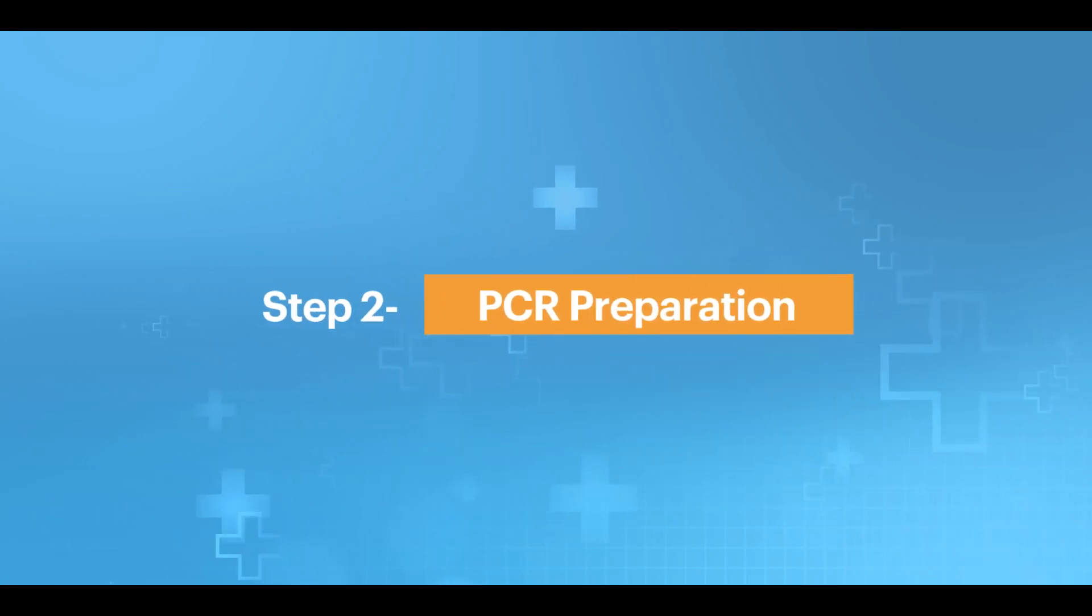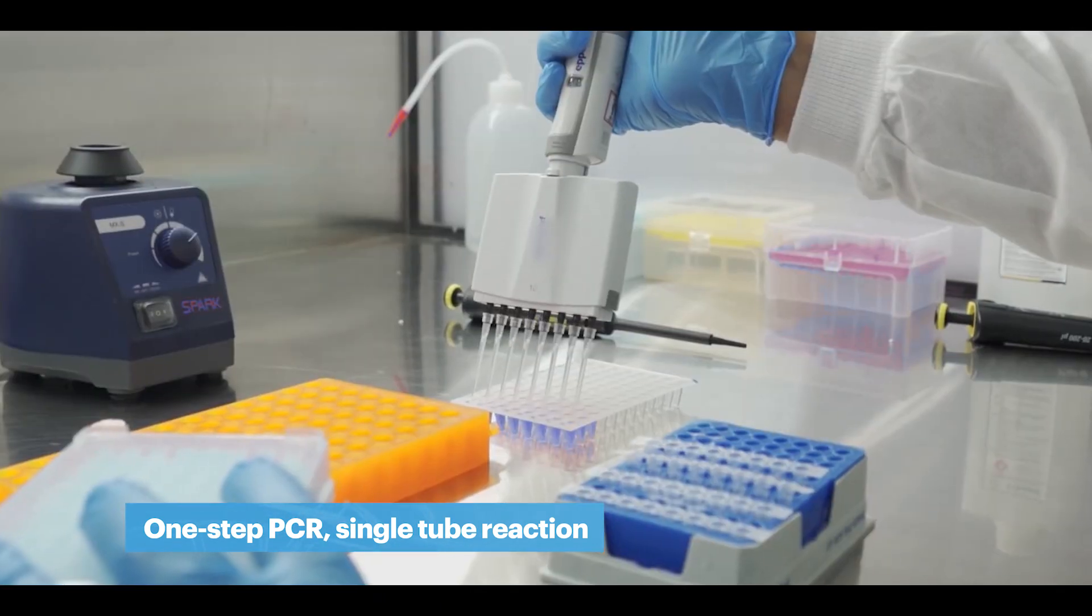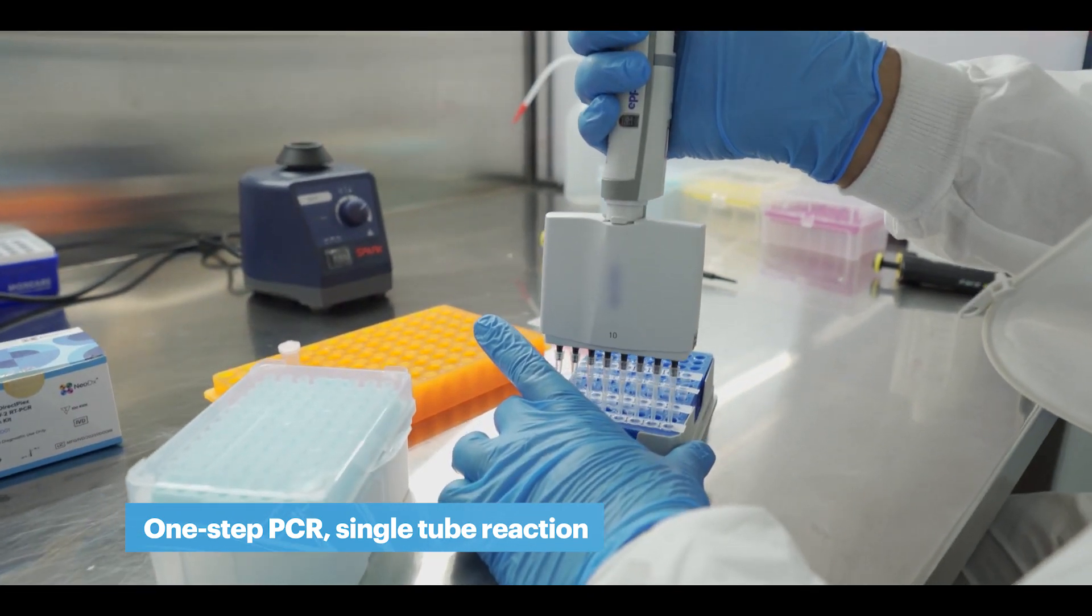Step 2: PCR Preparation. PCR reaction mix is prepared and dispensed into strips. Inactivated sample is added to the reaction mix.